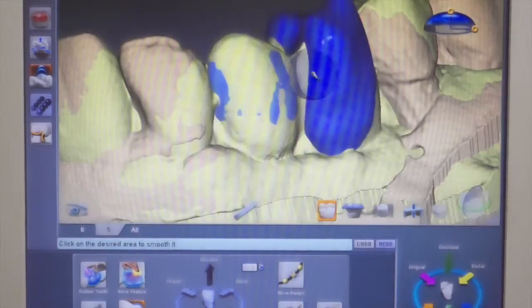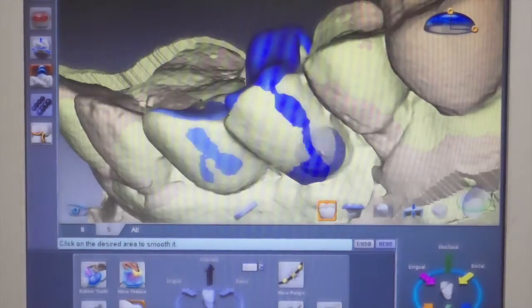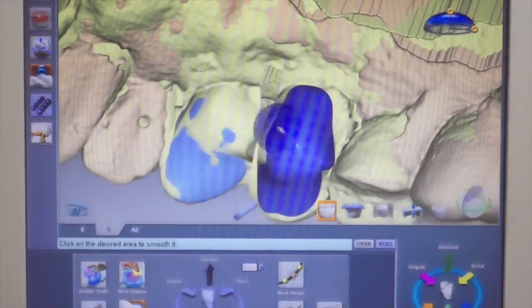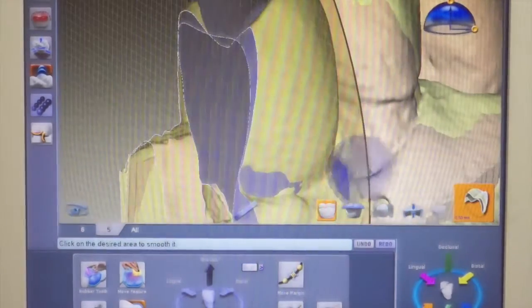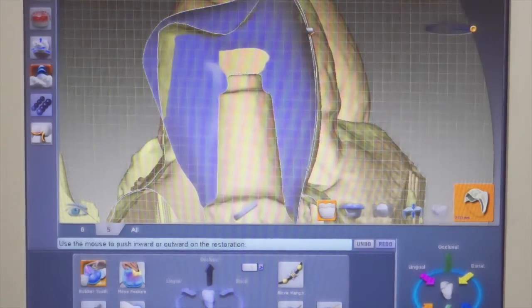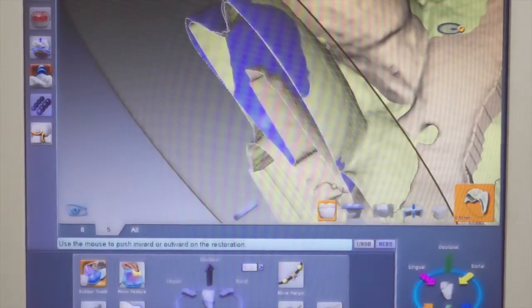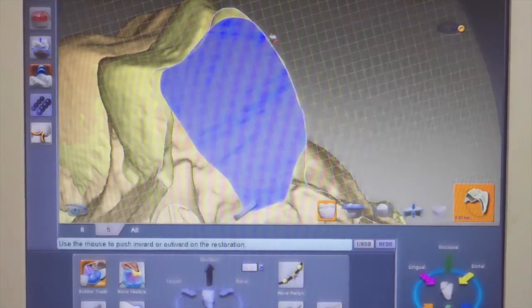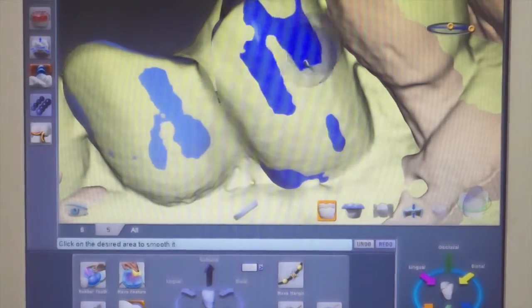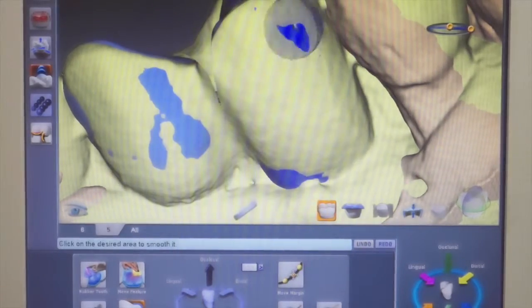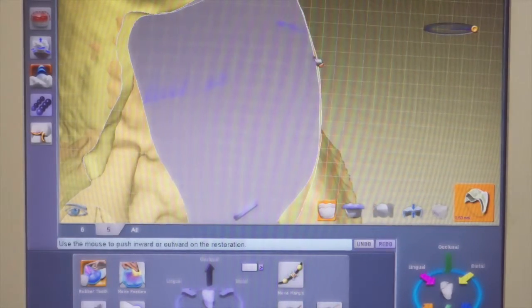All right, so now we're ready for smoothing the tooth. Now the first time through you smooth the tooth you can be very aggressive with your smoothing, and you'll notice as you run it around the proposal it brings it back to the location of the pre-op scan stent that we've created, so we want to do that aggressively. Now let's look and see what we've accomplished. Here you can see that our proposal has shrunk back this much from our stent, but it's not a lot so we can bring it back out again — still do it in a fairly gross manner. There are some areas that don't want to smooth out very well with smooth tooth, so it's better just to use rubber tooth to bring them closer in line. Now you can see how much closer our proposal has come to the stent.